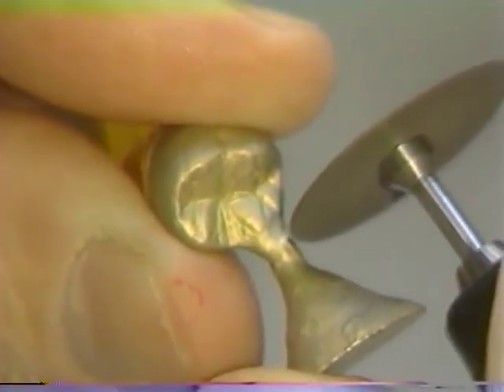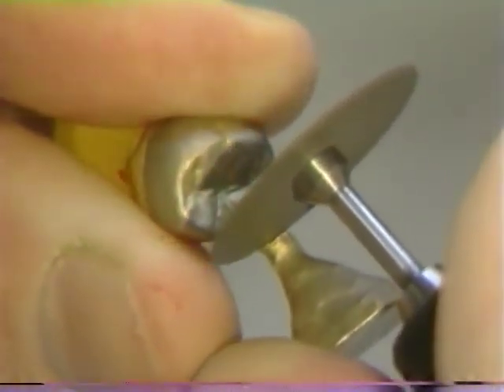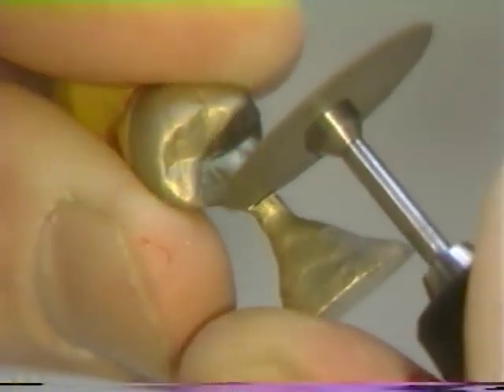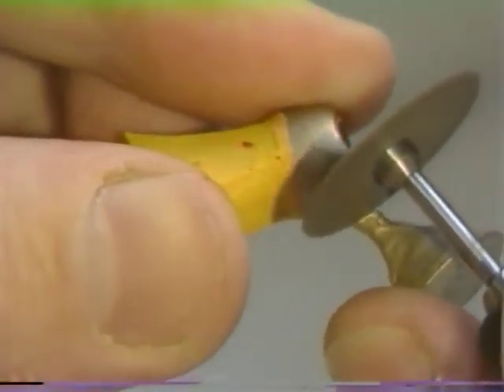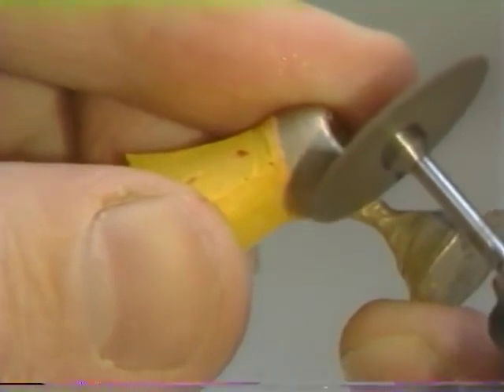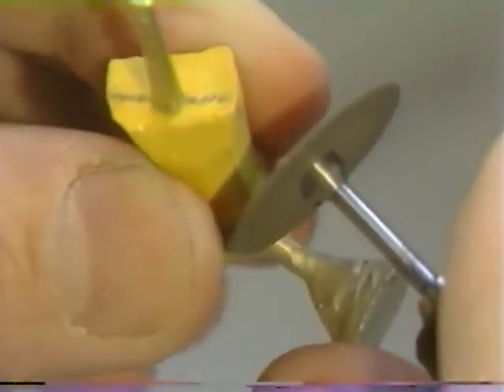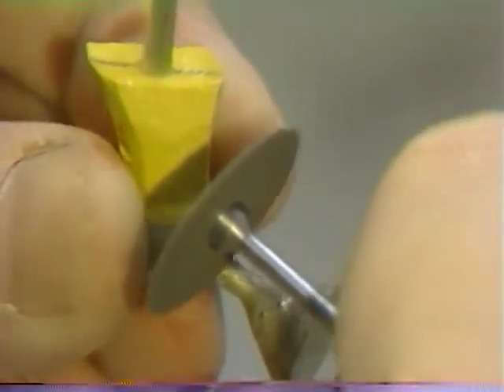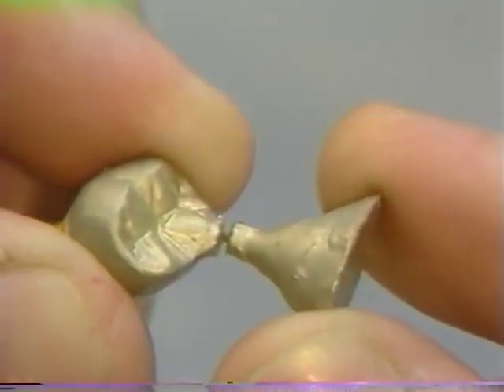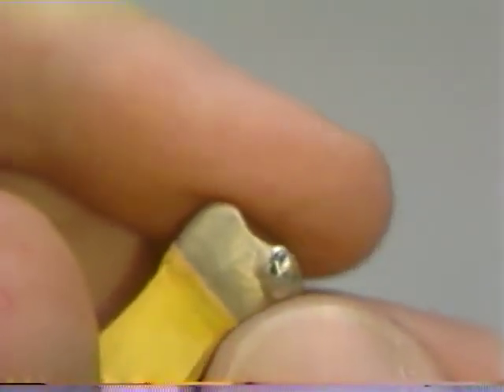The button is cut off by cutting with a separating disc circumferentially around the sprue. It is preferable to do this rather than to fully section the entire sprue at once, since the risk of fracture of the disc and potential injury is reduced. It is recommended that at all times when using rotary equipment you wear safety glasses. The button can then simply be twisted off and any remaining excess is dressed down with the disc.